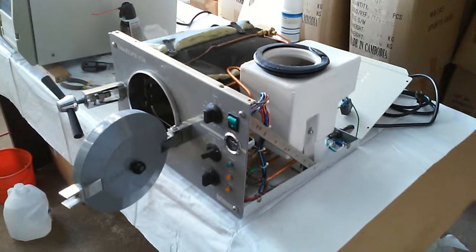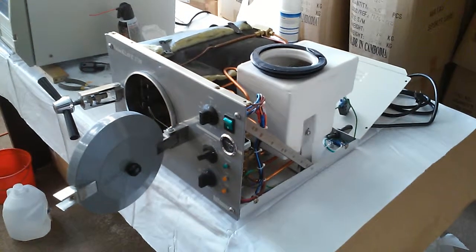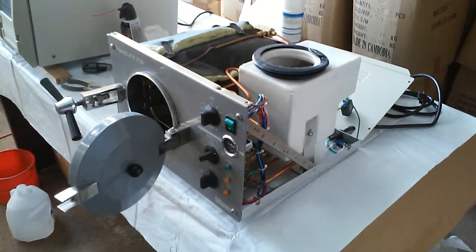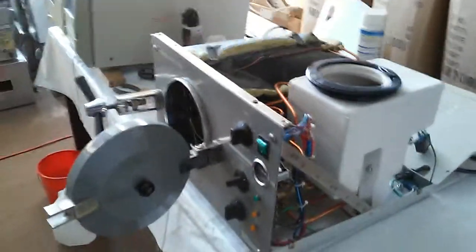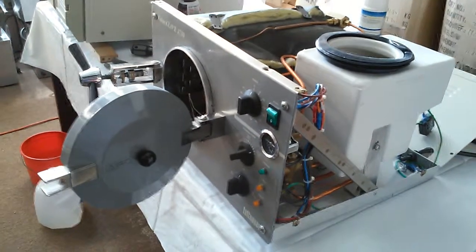The chamber sizes start from 17 centimeters, 23 centimeters, 25 centimeters, and 38 centimeters. The 23-centimeter model is about 9 inches, and the 25-centimeter model is about 10 inches. On the left side, on the top, you can see the timer.